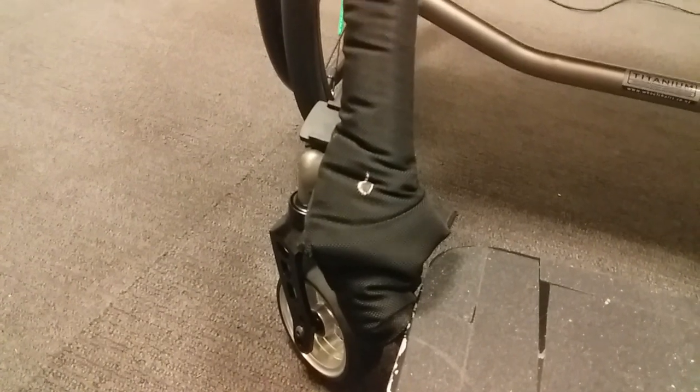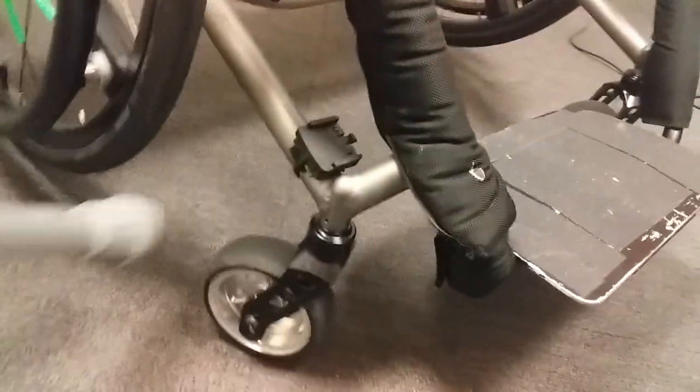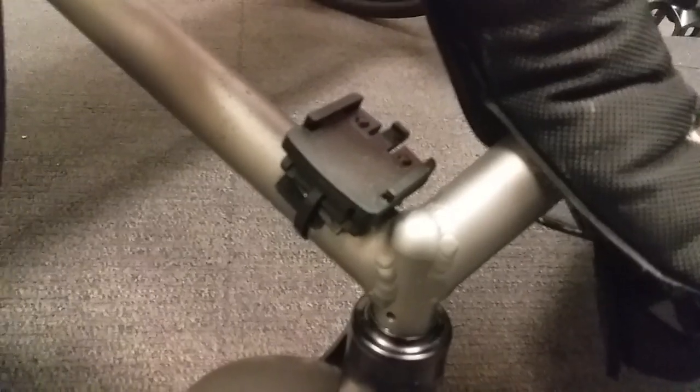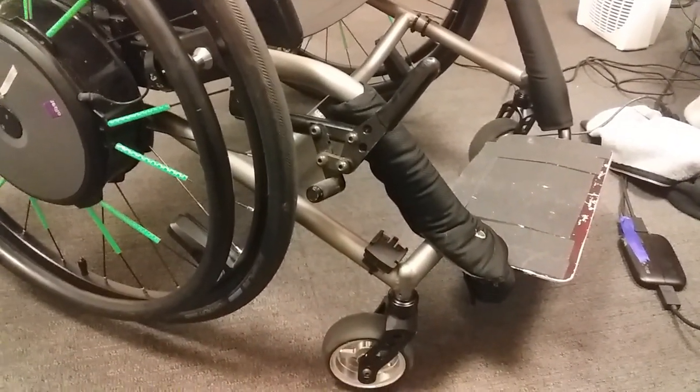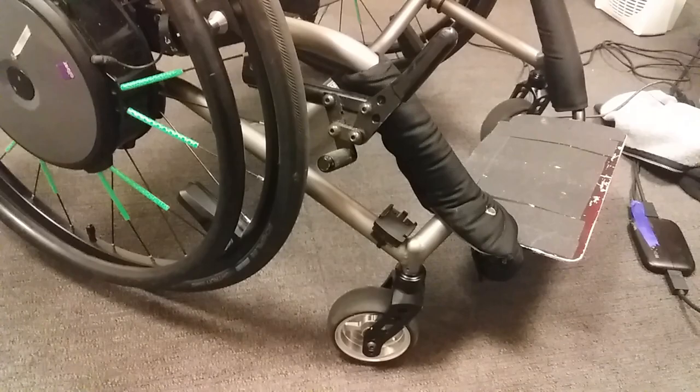This part here and this part here are completely different — for some reason it keeps coming down a lot and I've fixed it about 200 times, annoyingly. Also, I'll show you a speedo — don't bother, it doesn't work with Spinergy wheels or even this wheelchair. I had a wireless receiver over there, I bought it for about $12 online. Ever since I got the new wheels I can do everything from those, so it's a much better option.